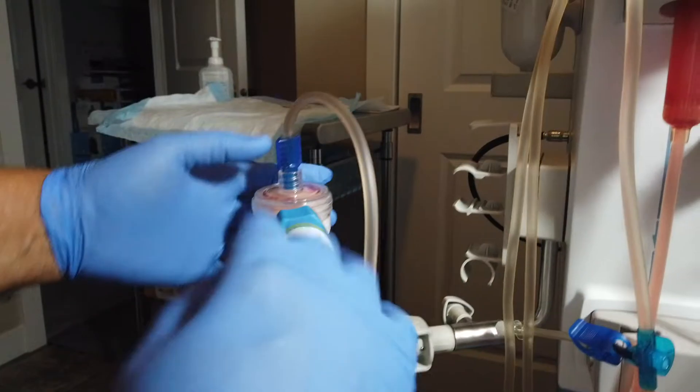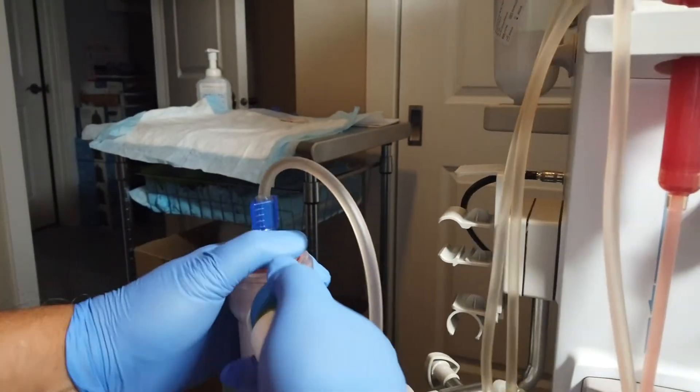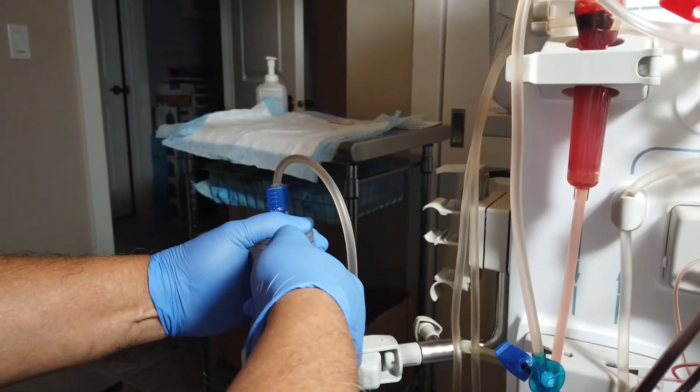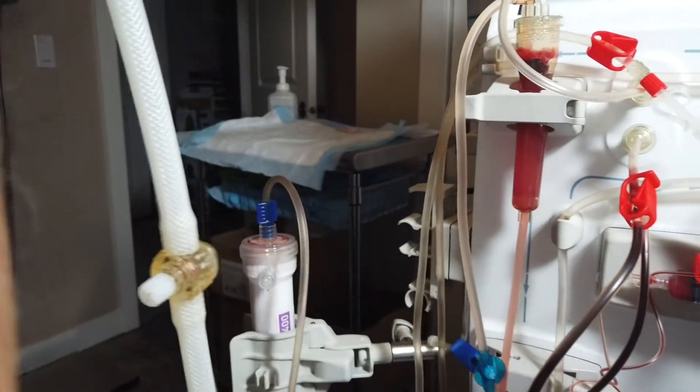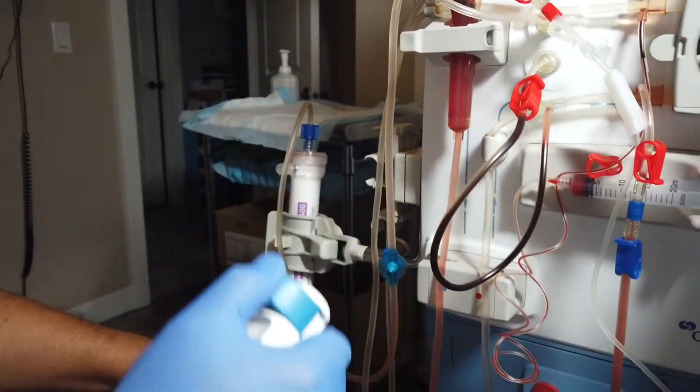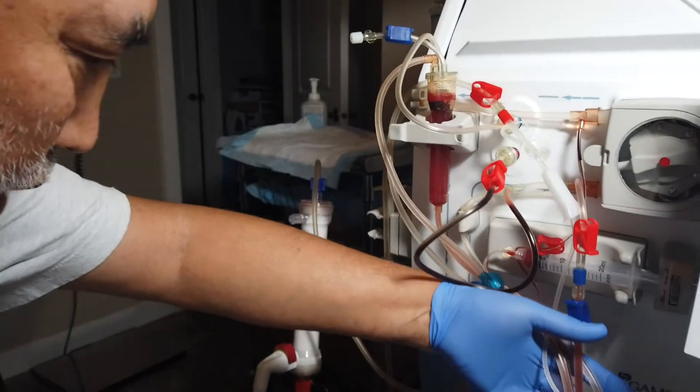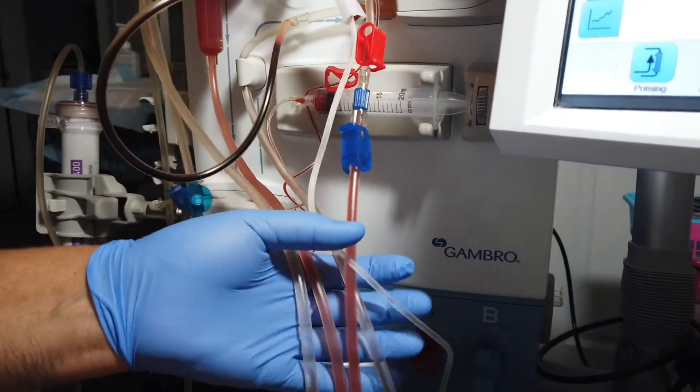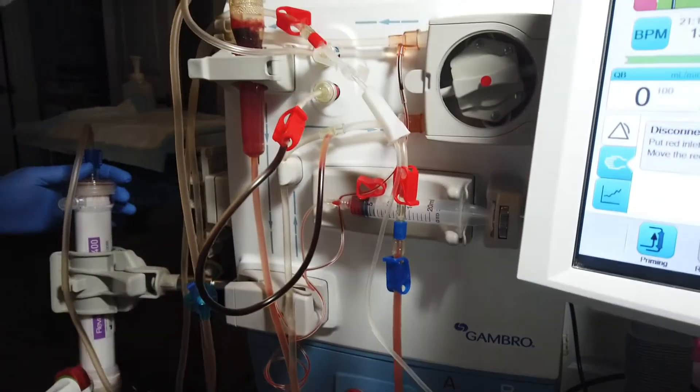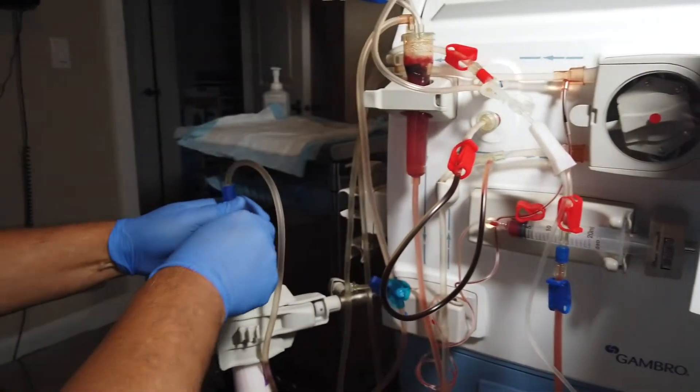The first thing we do is remove the blue connector. When I remove it, I always lift it up. The reason why I lift it up is because I don't want the water to drain out and get everything wet. After I remove that blue one, I cap it off.